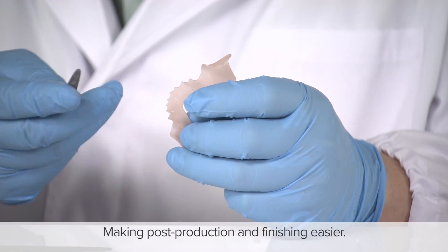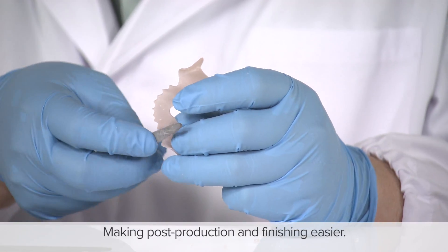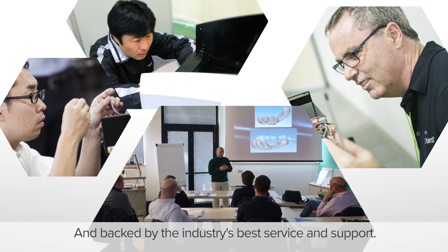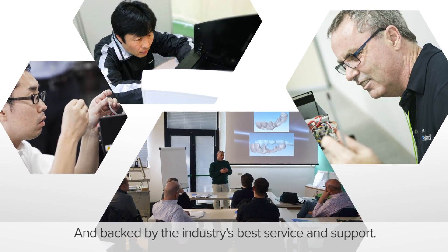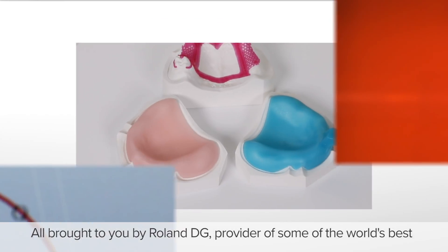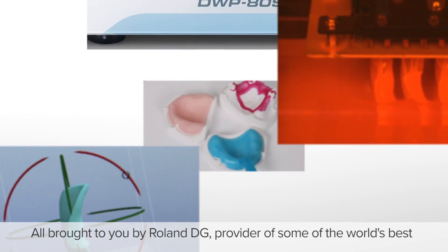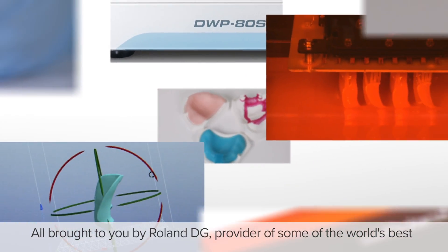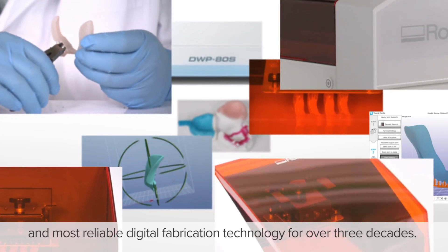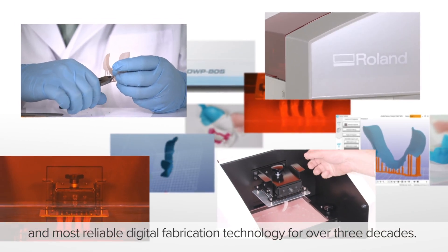Making post-production and finishing easier. And backed by the industry's best service and support. All brought to you by Roland DG, provider of some of the world's best and most reliable digital fabrication technology for over three decades.